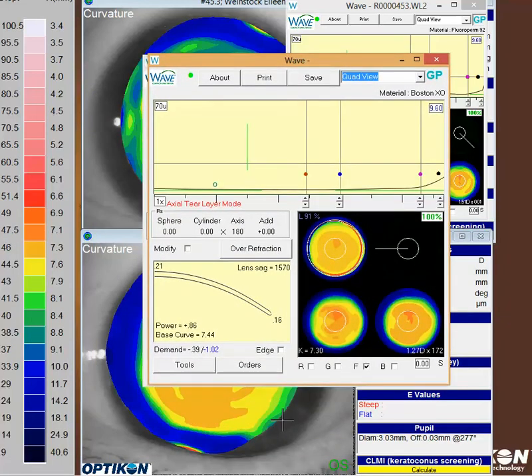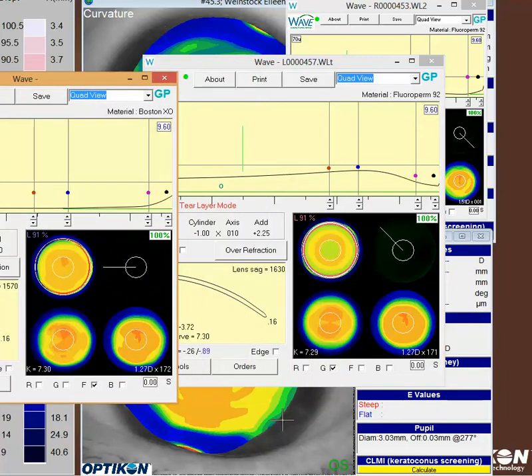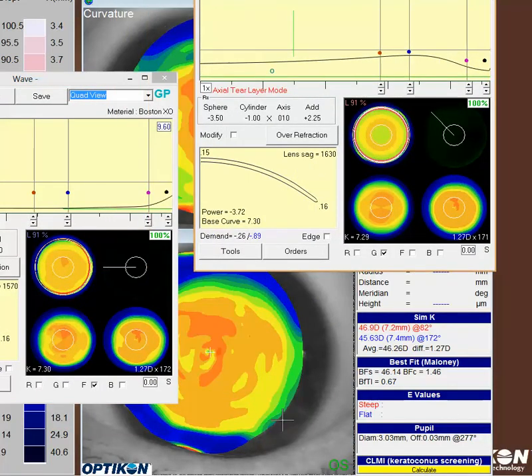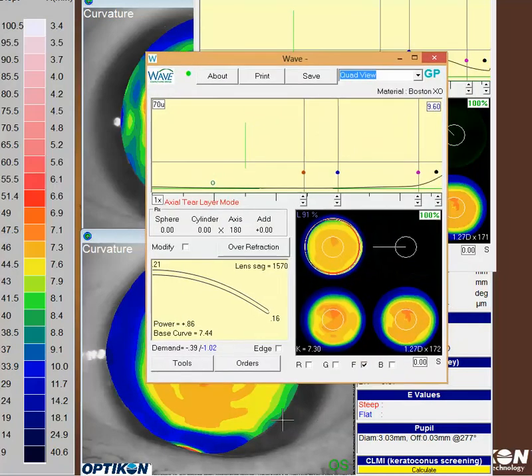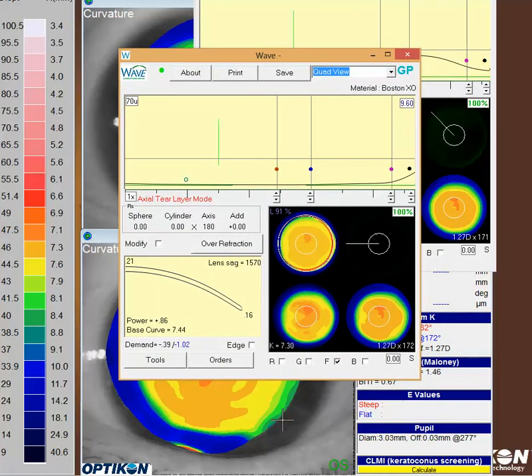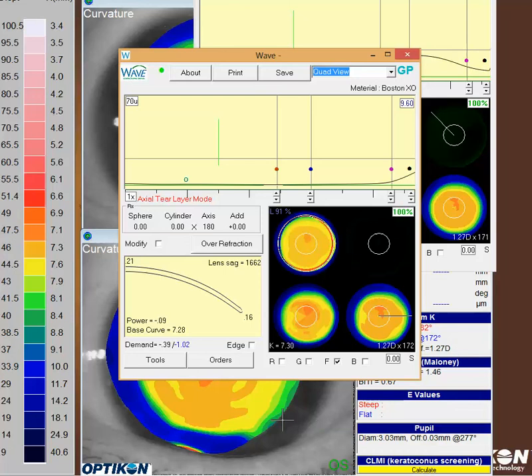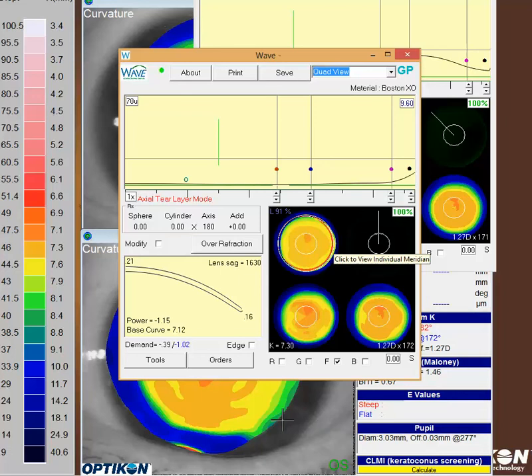This time I did not average the corneal astigmatism. While it still isn't a perfect representation, I think it gives you a closer match to the true topography than your original design. I went to free form to try to get it as closely lined up as I could in all the different principal meridians. You'll notice now you've got a very closely aligned lens in that landing zone, which will keep this lens centered a little better and probably not rotate and dig in as much.